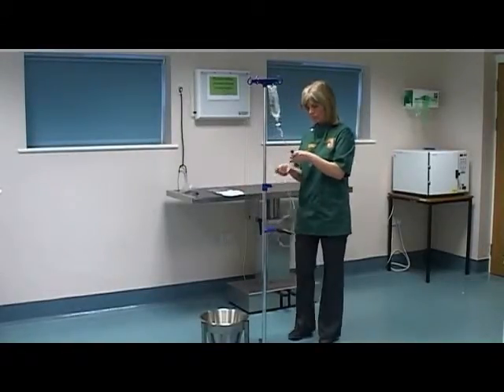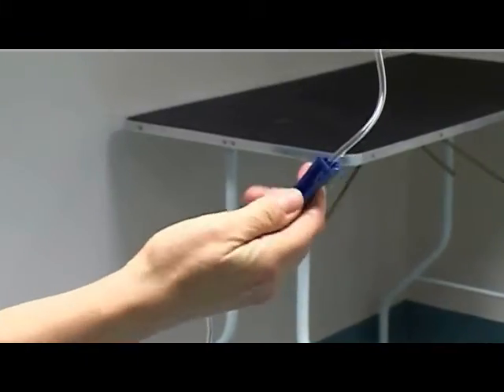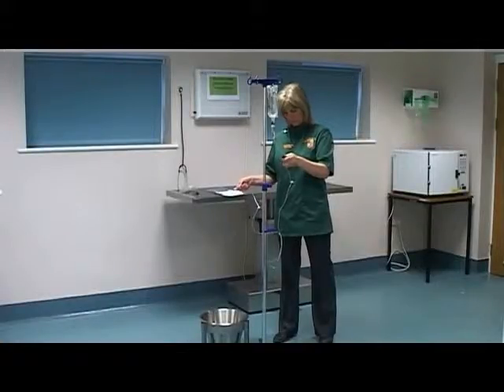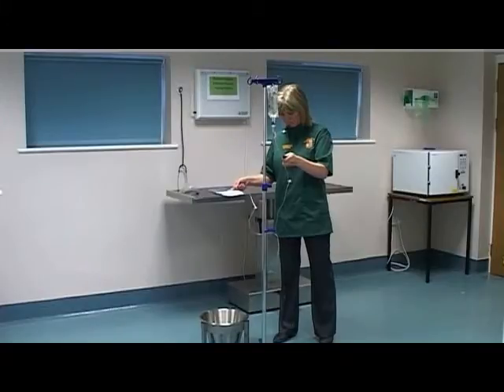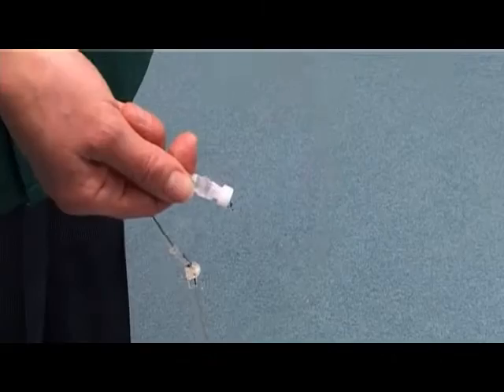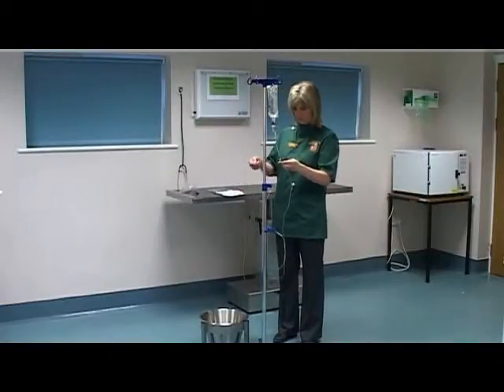Release the regulator to fill the drip line at a reasonably slow pace. Check the drip line to ensure there are no air bubbles left within the drip line. Ensure there is minimal wastage of fluid, but air bubbles must be removed.